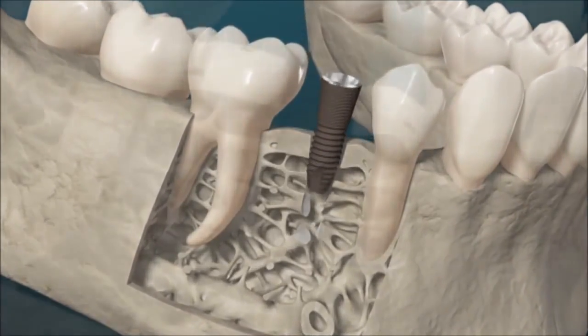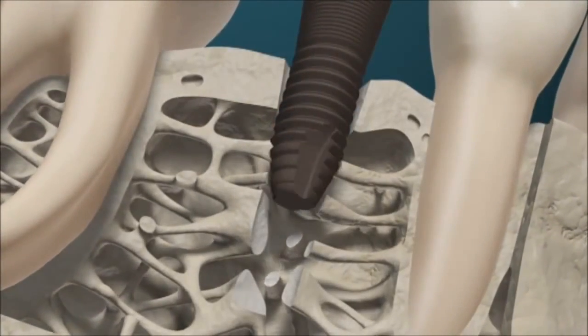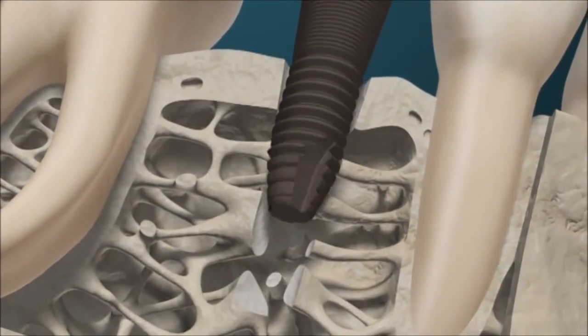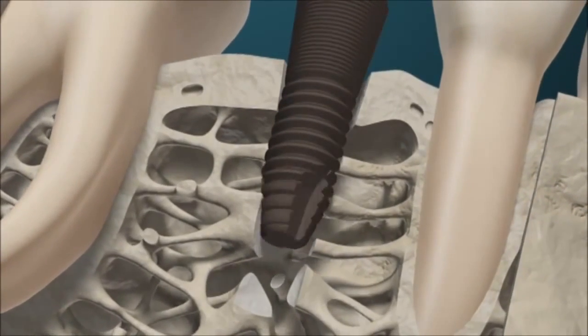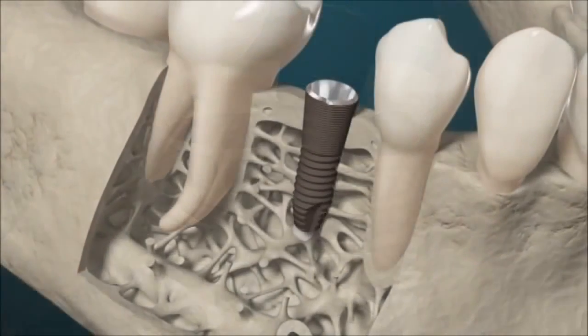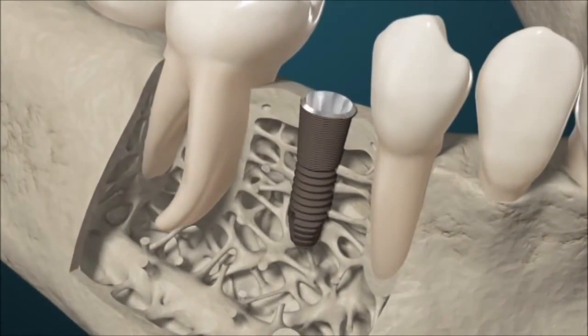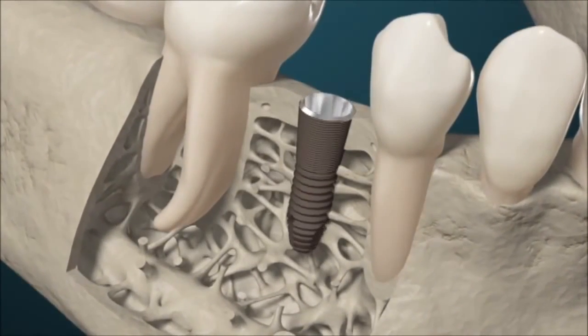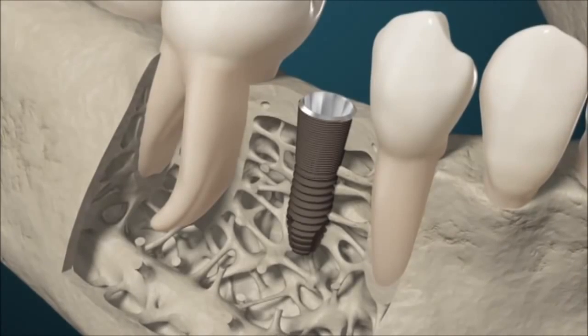Osseointegration, or secondary implant stability, requires a highly complex sequence of additional biodynamic processes. This is facilitated by finely tuned communication between the main actors of wound healing — the cells.